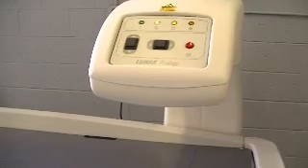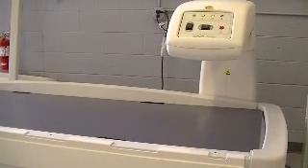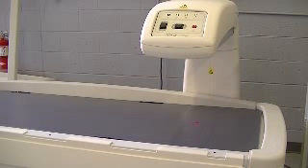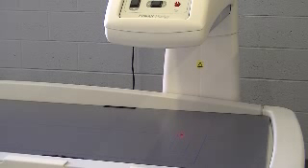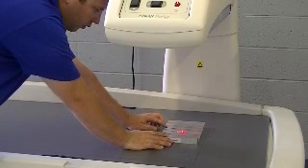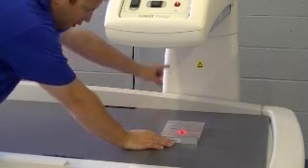The arm now is taking reference counts. The arm is going to move into position and the laser will come on. You want to set the aluminum phantom up on that laser with the steps going up towards the back of the table. You want to center it on the middle step, with the laser line right up in the middle, steps going up towards the back of the table.